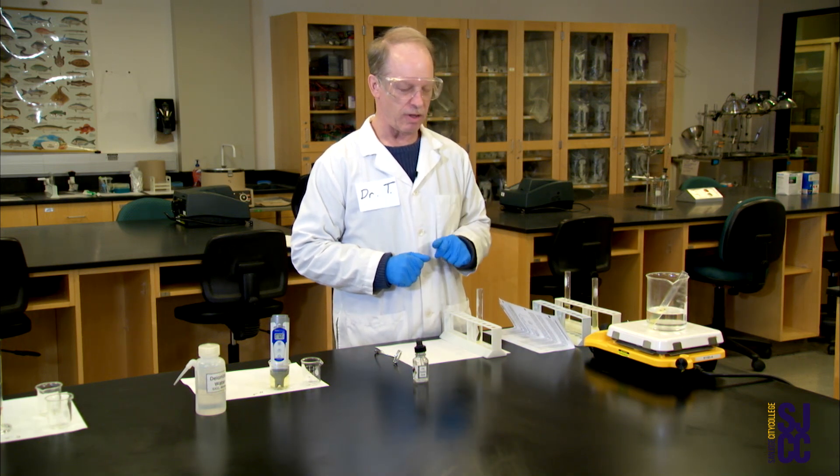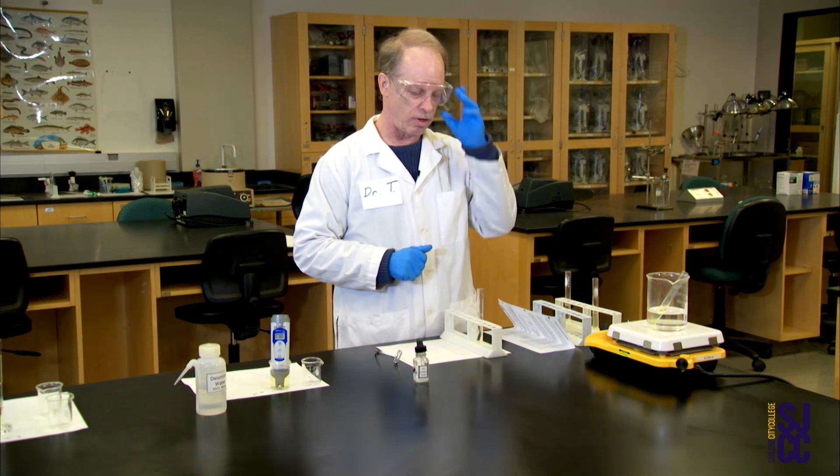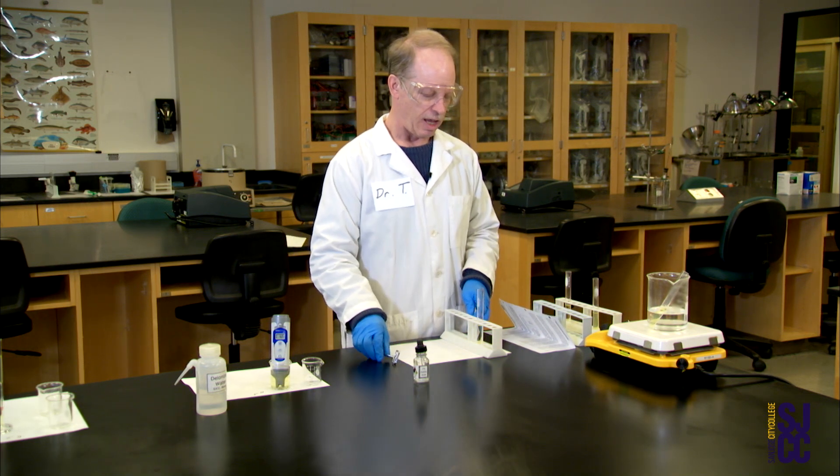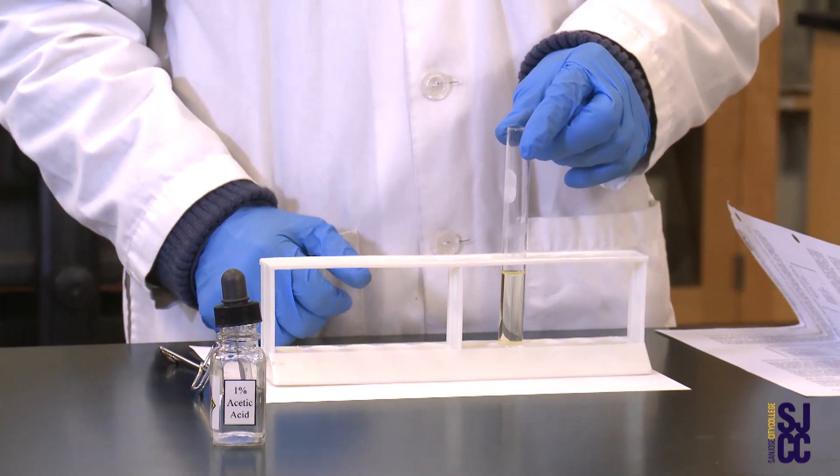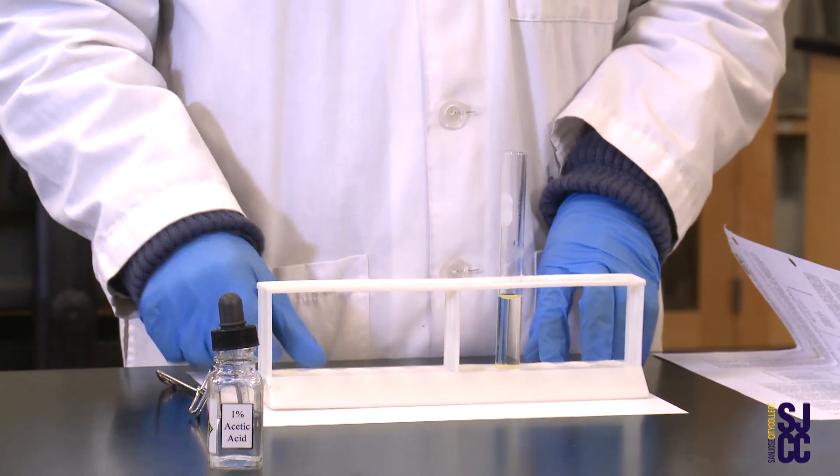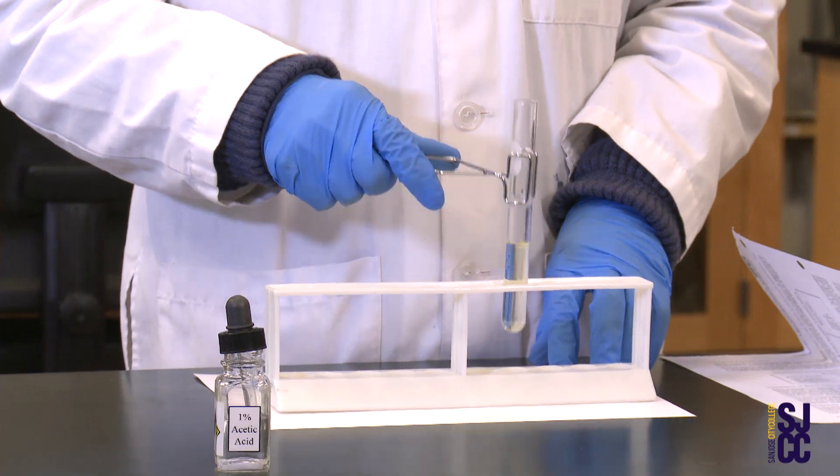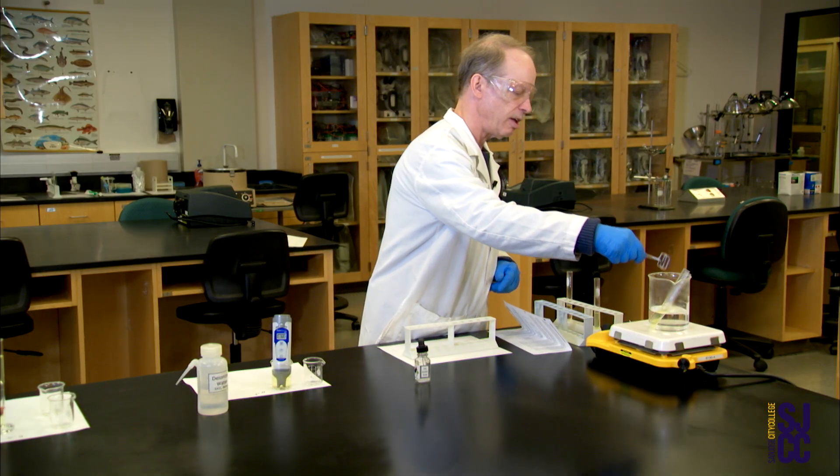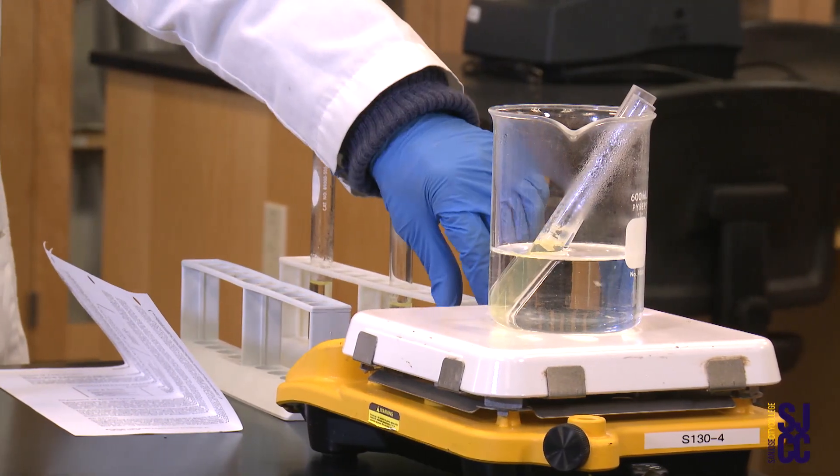The way I'm going to do this - I'm not going to use one of those test strips because those are way too boring. I have this test tube with urine already in it, prepared a little bit ahead of time. The procedure involves taking your test tube of urine and using a clamp, placing it here in a boiling water bath which I forgot to turn up so it's only kind of simmering, it's not really boiling.